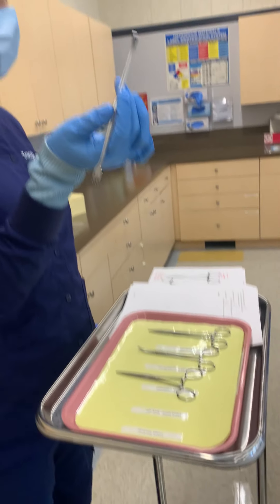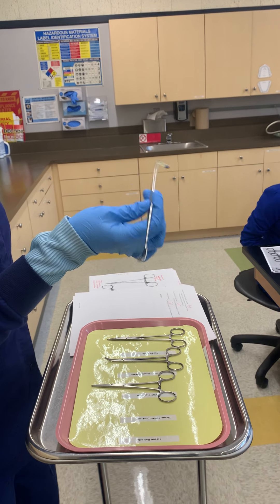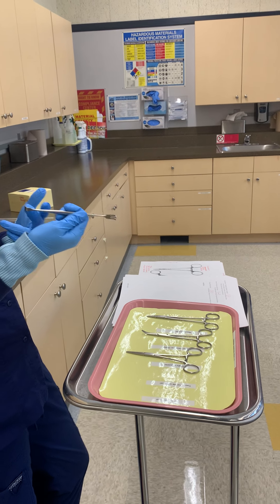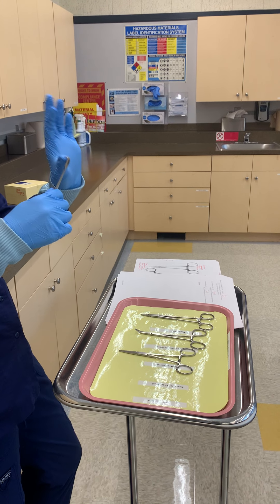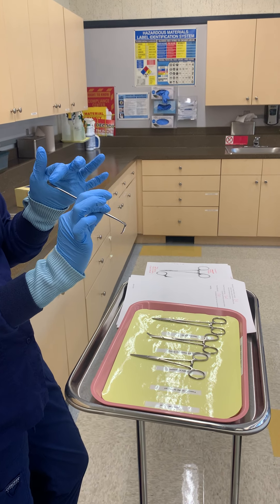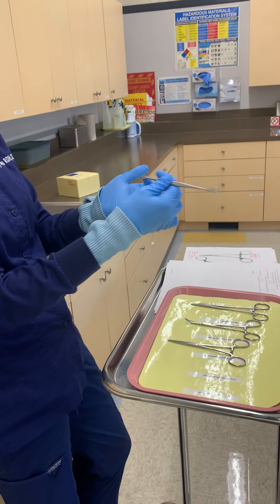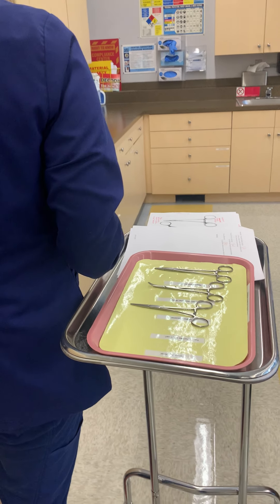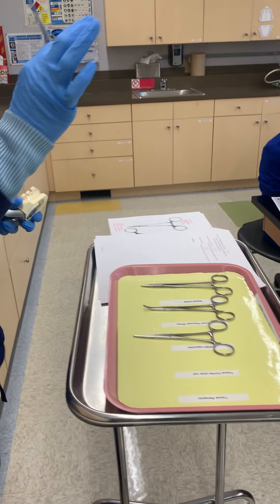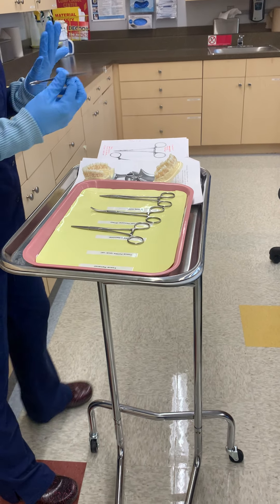Then we have the tissue retractor. This is meant to delicately retract soft tissue without causing trauma. In the event there's a flap and we don't want any trauma, this just holds it back. In this case it does have three prong-like ends, but it's not enough to cut through — it just holds the tissue back. There are tons of different versions of all of these instruments, and you'll see that in your flip guide.